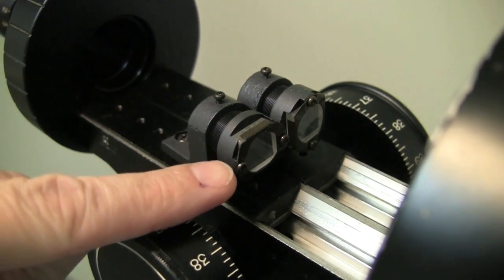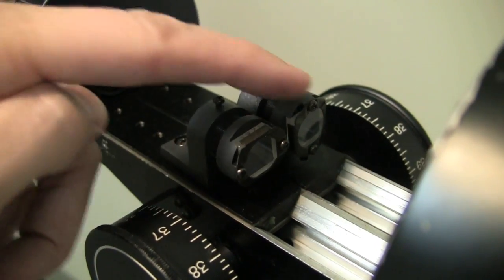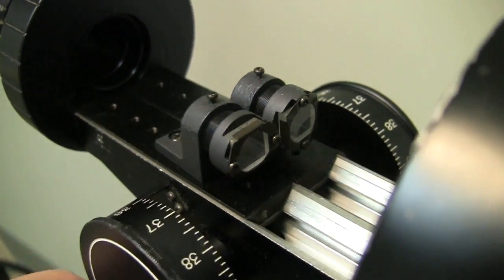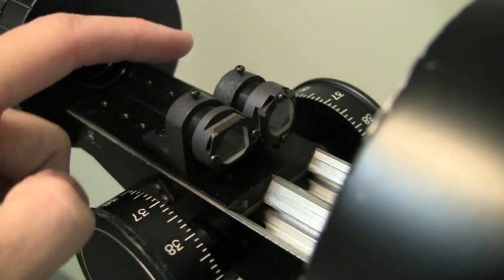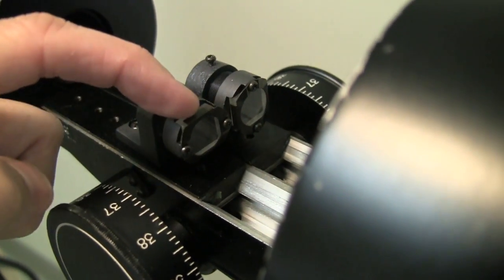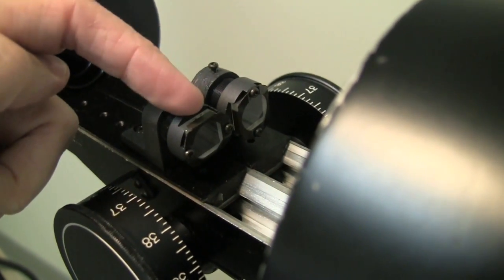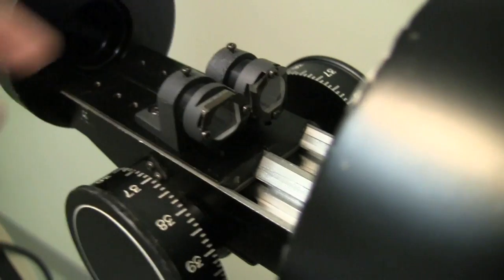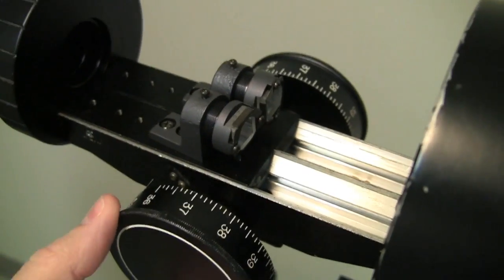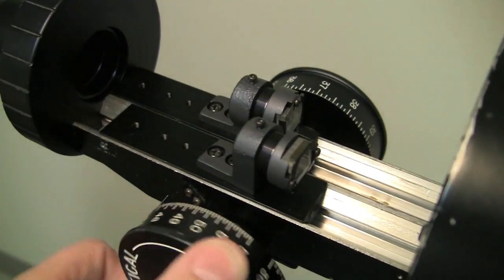And from this side, you can see that I've got these two little lenses and clips on each one of these sliders. And these are actually two prisms. One of them is a horizontal prism, and one is a vertical prism. The horizontal is for measuring the horizontal meridian, and the vertical is for measuring the vertical meridian. So all you're doing when you turn the knob is moving this prism back and forth closer and farther away from the patient.